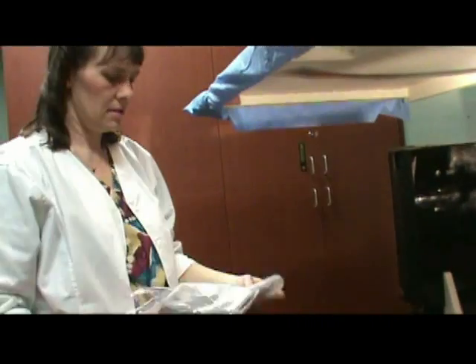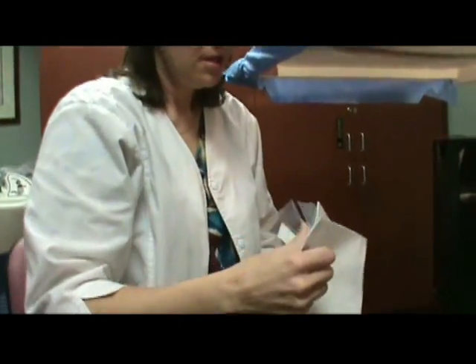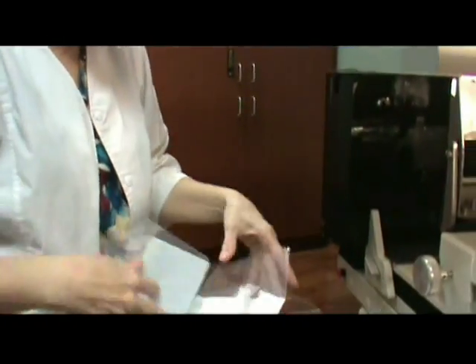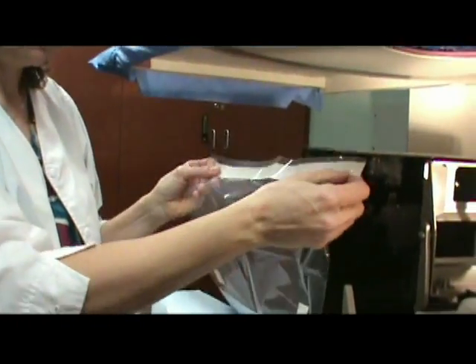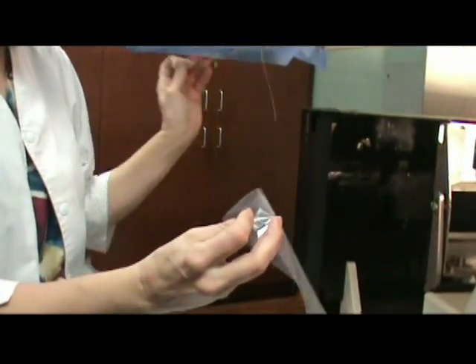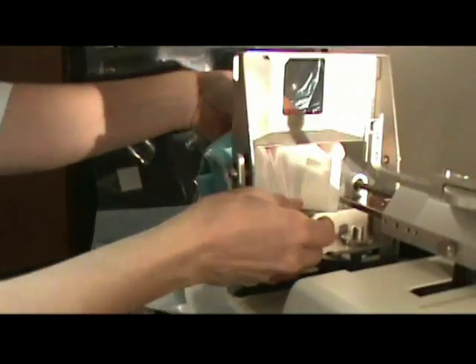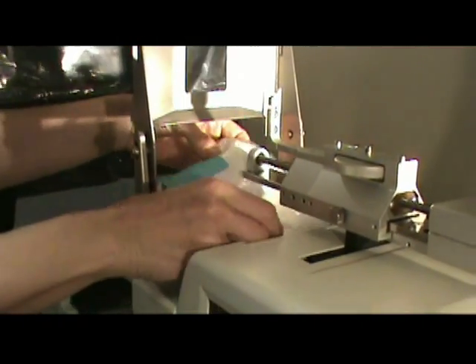The second piece is the main stage drape. When we open this up, we're going to look for the long adhesive strip. We're going to peel this off, and this is going to adhere to the top of the camera. Now holding these two together, I just fold these in here, because this is going to go through your paddle and down this way.